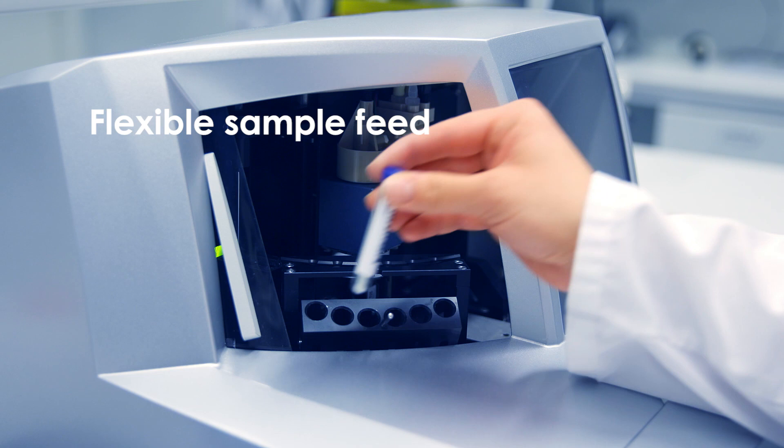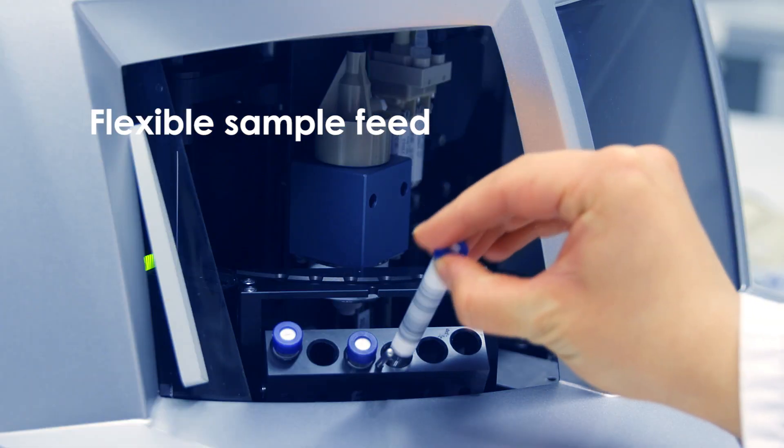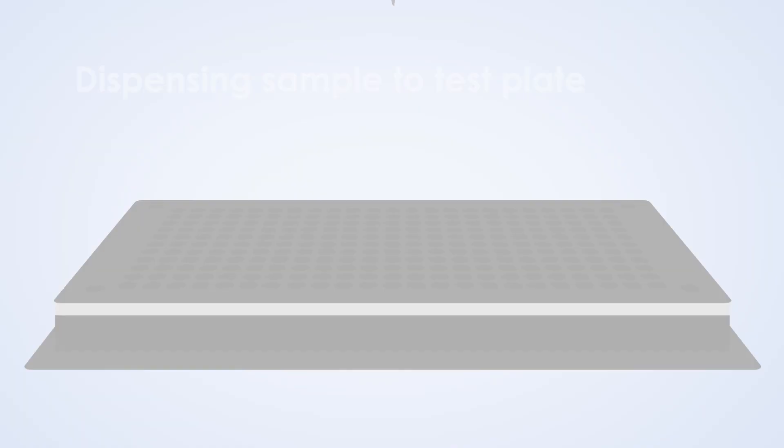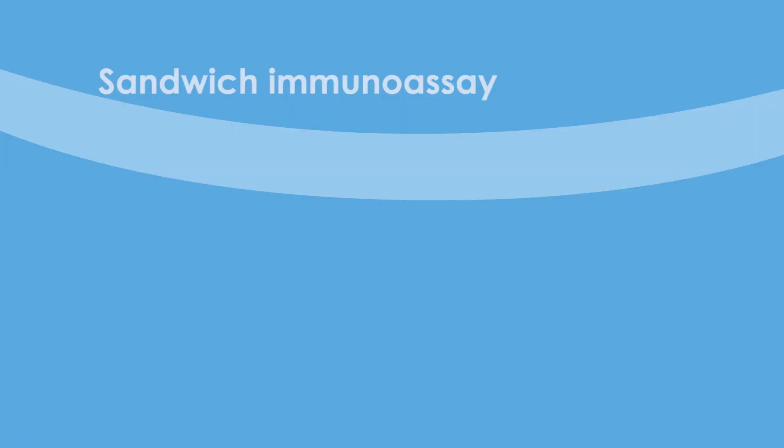Maripoc is a continuous feed analyzer. No more delay due to batch runs. The sample is automatically dispensed onto the test plate.